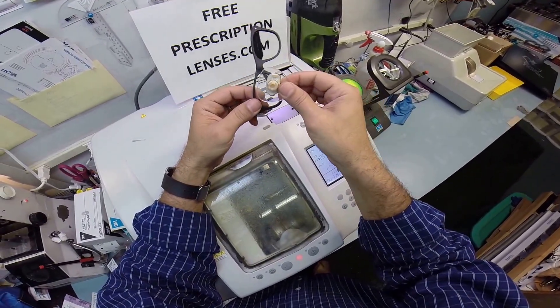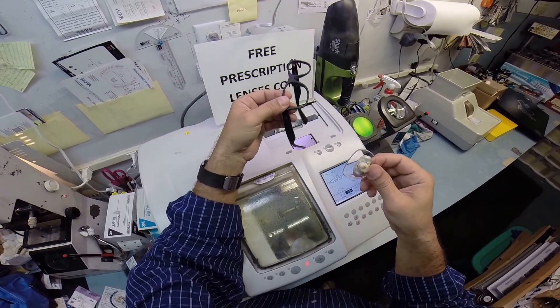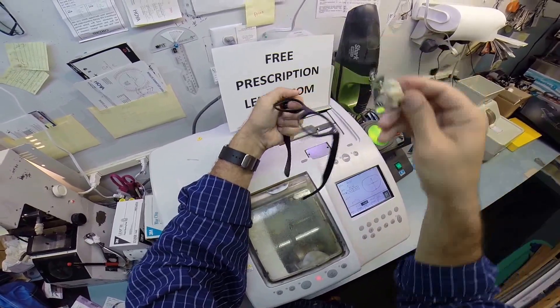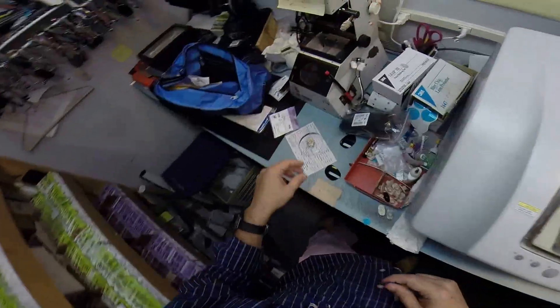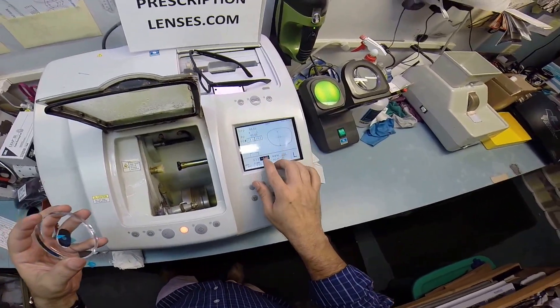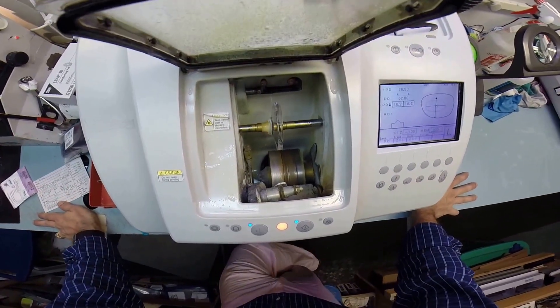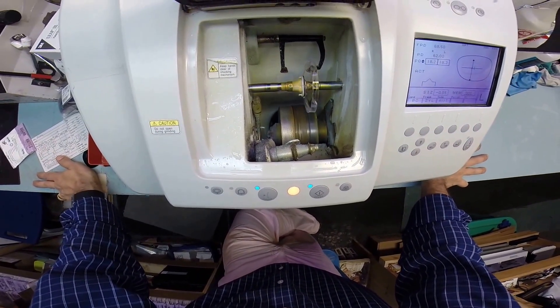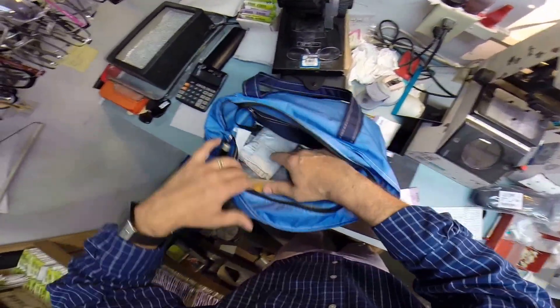So if you ever want to change your lenses out, this is what you do. It's always with the thumb. It's always at the nose. You're always going to press down with your thumb at the nose. So to put your lens in, I have the frame with the temples pointing downward and the lenses upright. And I have the side I'm working on closest to me. I'm not trying to reach over the frame. But I'm going to tuck it in at the outside corner first and using my thumbs, press down at the nose and that snaps in perfectly every time like the 52 does. The 55 has a deeper bevel, so I'd always have to cut it down a little bit more. So I'm putting your left lens in and it's going to do the same process. It's going to trace the left side of your frame now onto the lens to make sure it's large enough to cut out. Just like before, starting with the rear surface, then moving over and doing the front surface.